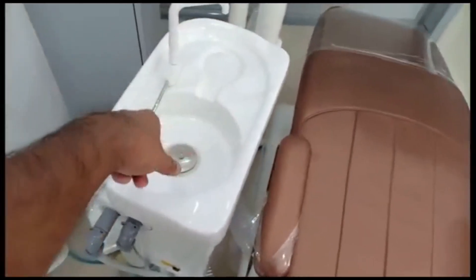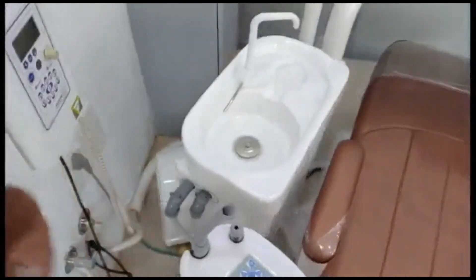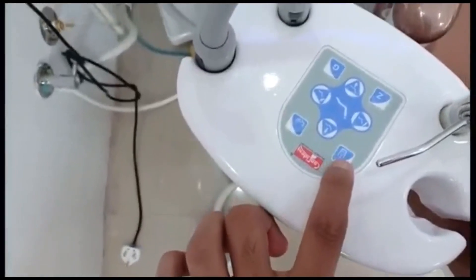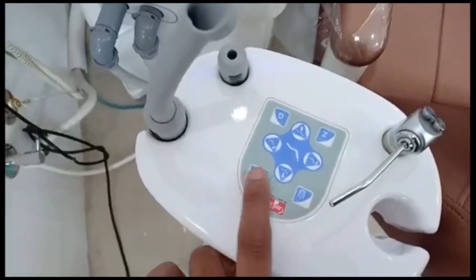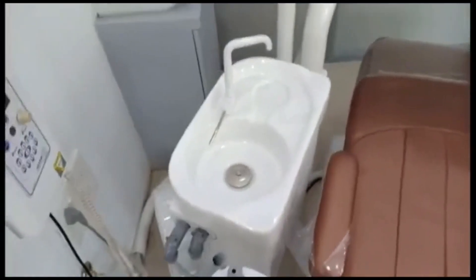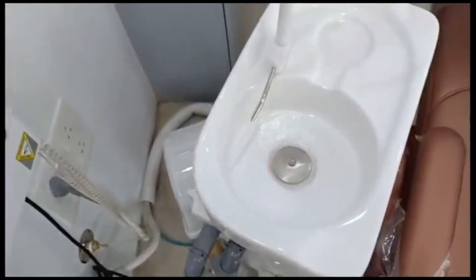The saliva and all debris is collected here and drains off — we have drains connected at the bottom of the chair. We have two symbols here: one shows a glass of water, and the other is for the spittoon. Pressing the water symbol causes water to come out, which can be used by the patient for gargling and washing the mouth. The other is for cleaning the spittoon.